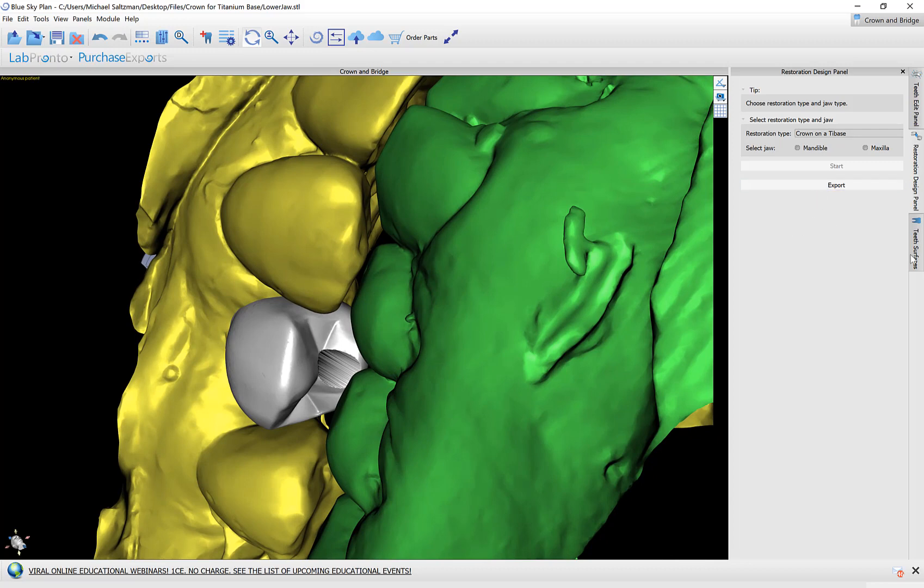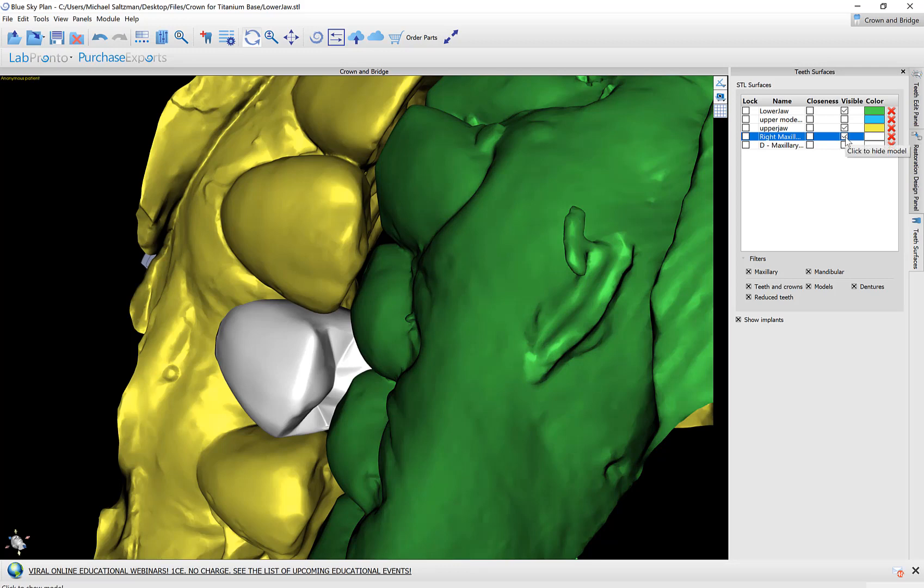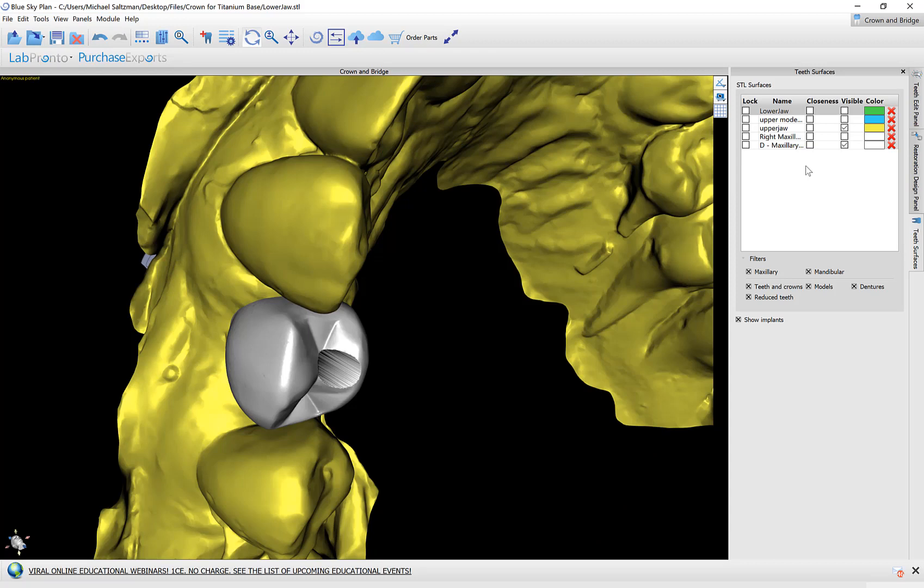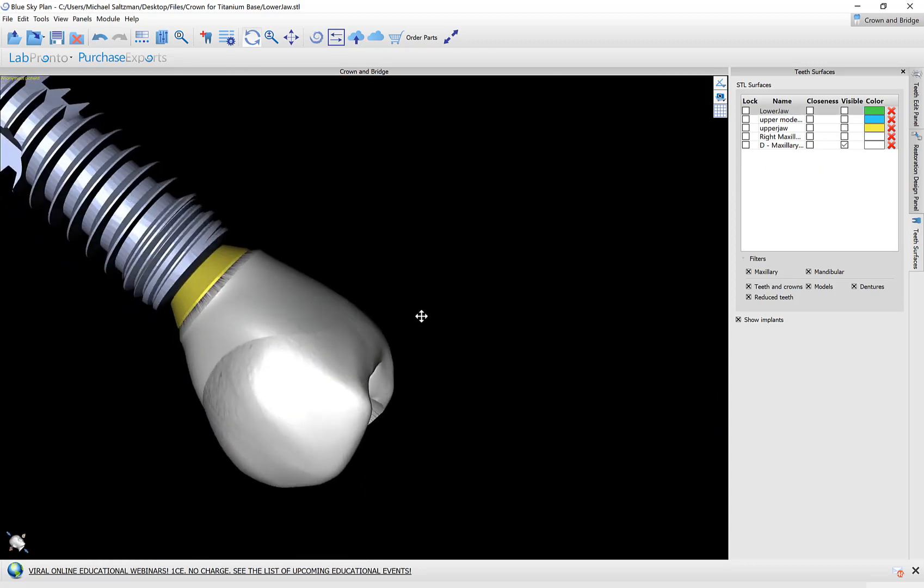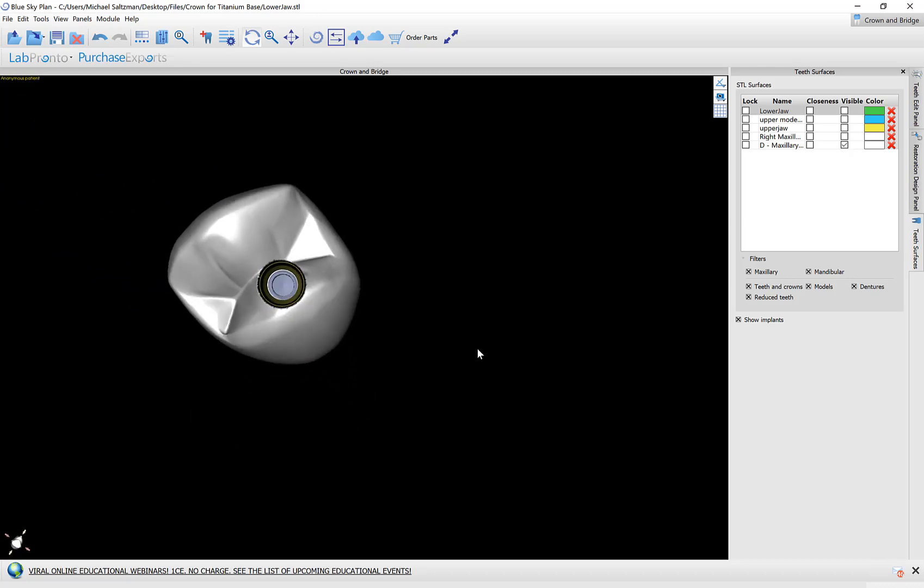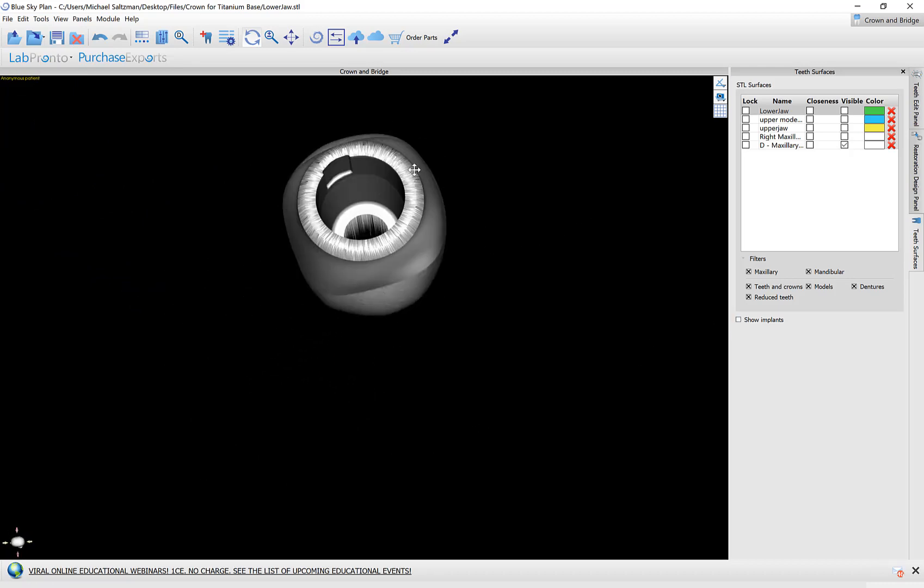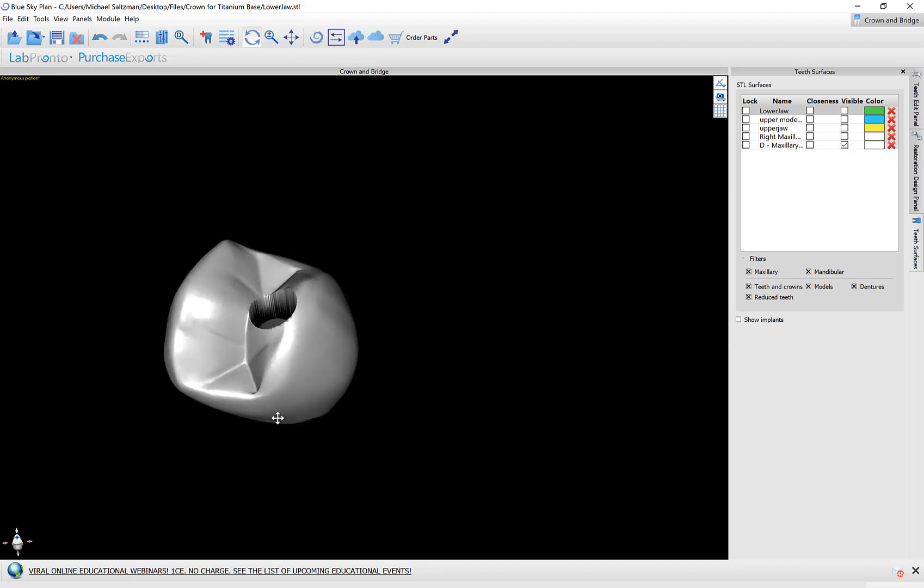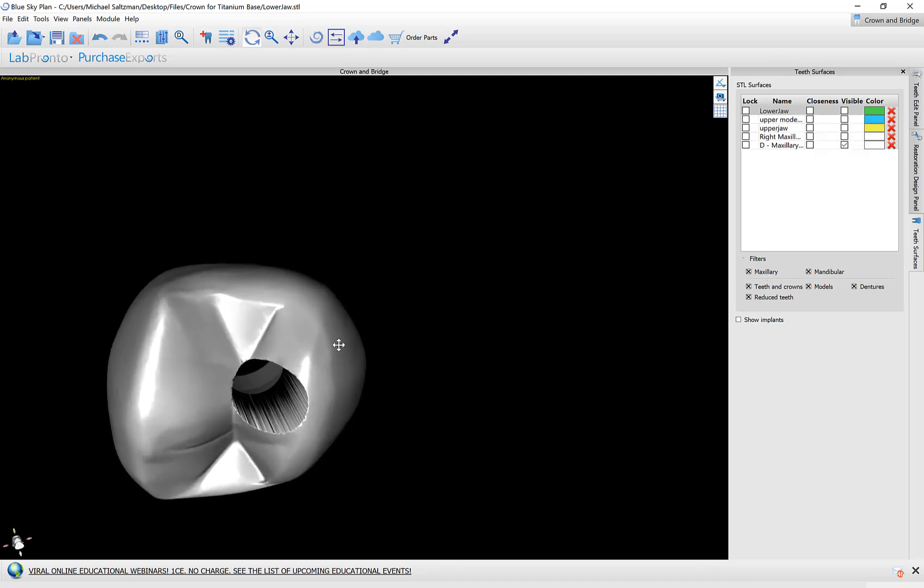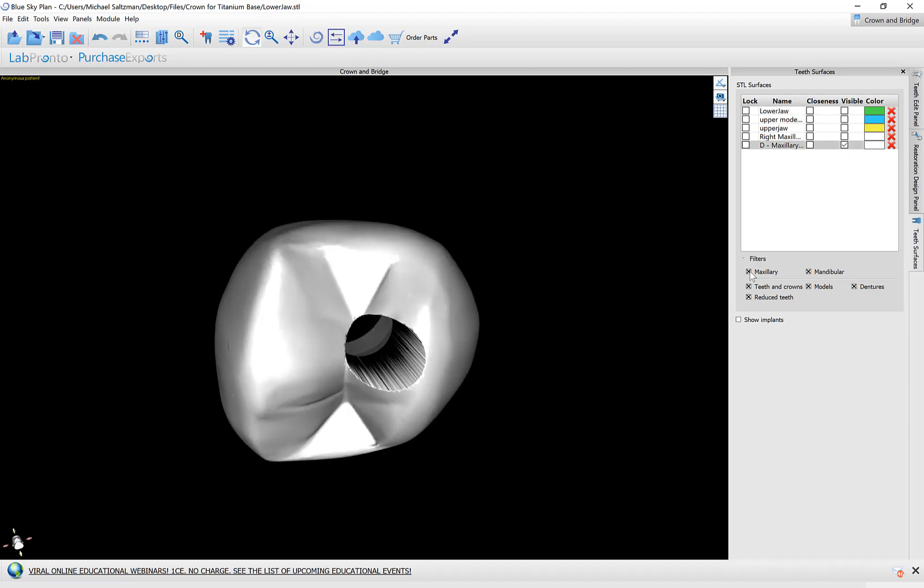So before we go to export let's take a look. Let's go to teeth surfaces. We have two crowns listed here. The one with a D is the designed crown that we just made. The one without the D is just the original crown. If we wanted to restart the process or make it again then we could use that original crown that's still there. And we could see here the crown that we created. You could click show implants to turn that off and see the interior of the crown. We also have different filters just to control the drop down. So if you have a long list of surfaces for multiple crowns multiple models you could use the filters to hide and show different surfaces quickly and conveniently.